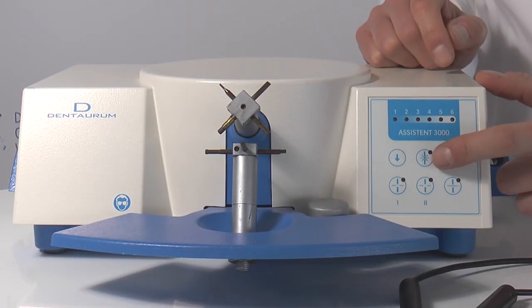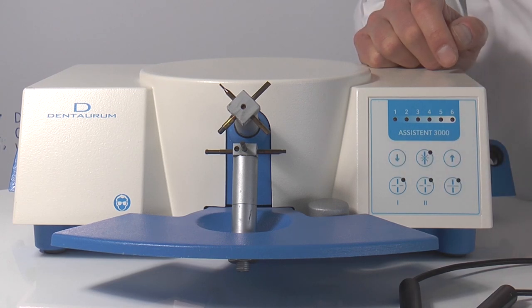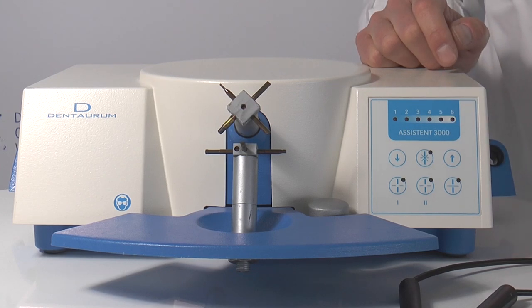This is the mode for welding. With the two arrow buttons you can reduce or increase the welding power. With the LEDs you can check which function has been selected and which power level has been set.